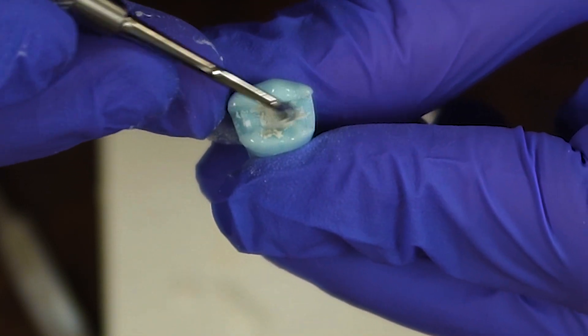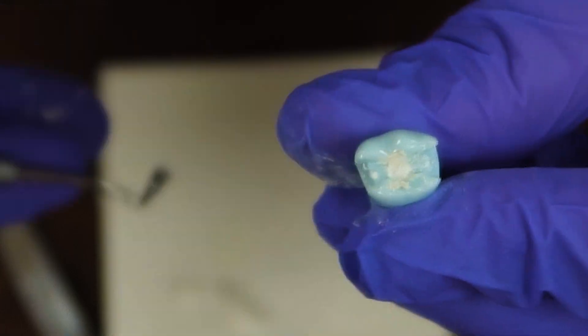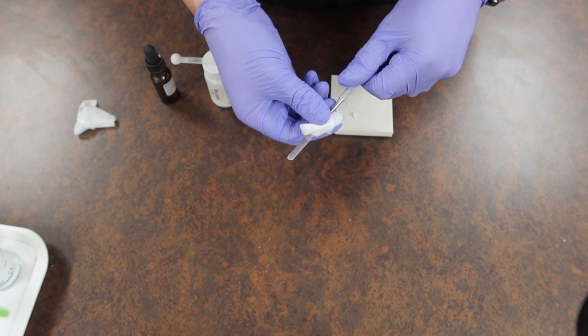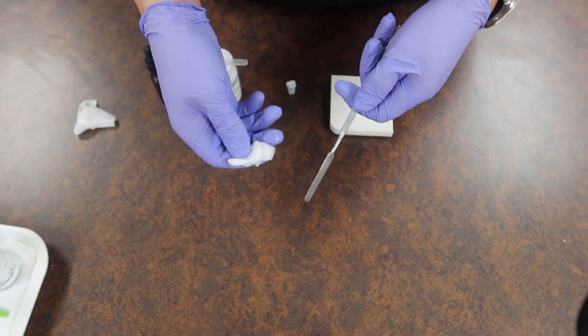And as always, once we're done mixing and getting our materials placed, wipe your instruments to make sure that your sterilization assistants or whoever's manning it doesn't have a hard time getting these clean for the next patient.